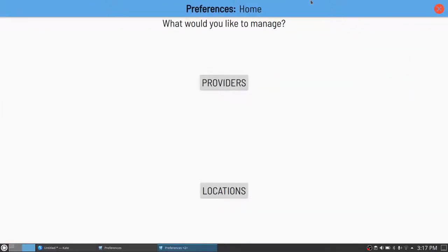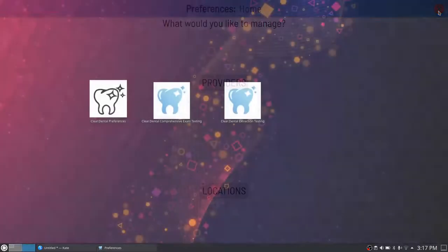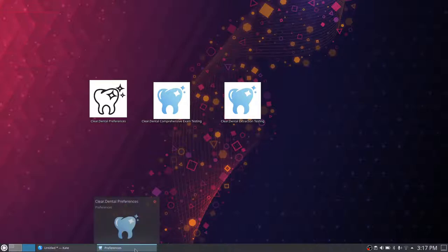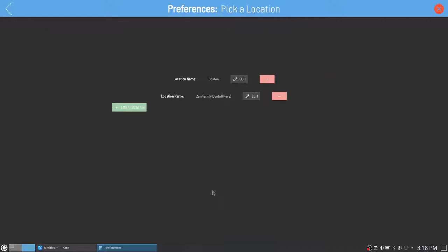One thing to notice is that this is using a light color scheme. The technology being used — QML Qt Quick Controls — makes it really easy to re-theme your entire control set. Here it is using a light theme, and here it is again using a dark theme. If you want a white-on-black kind of theme, it works just as you would expect, colors and all.